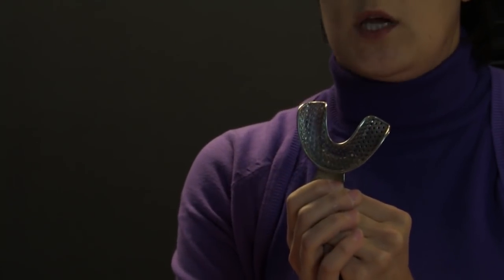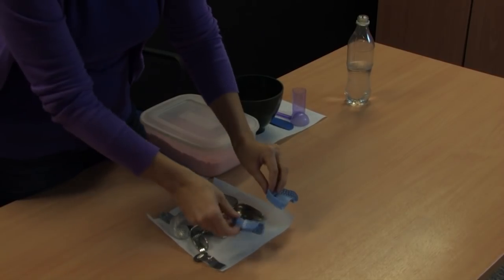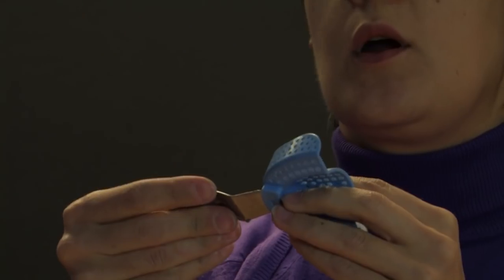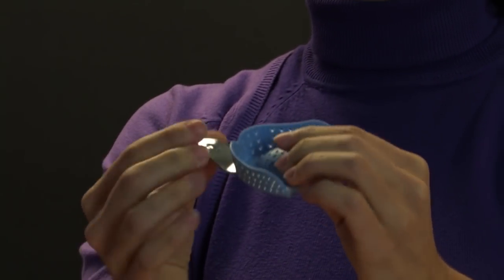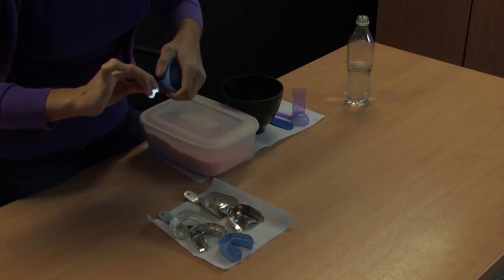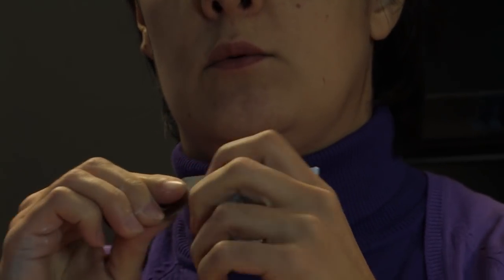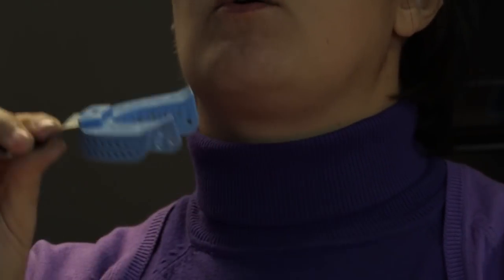Here we have a lower dentate metal impression tray. The last two trays are lower and upper dentate disposable impression trays. These trays are single use and, as you can see, they don't have handles on them. In the exam or in the surgery, if you get a tray like this you will have to attach the handle. The handle goes in like this so that when placed in the patient's mouth, the lip will fit in the gap between the handle and the tray. For the lower tray it works similarly — the handle goes in accordingly.